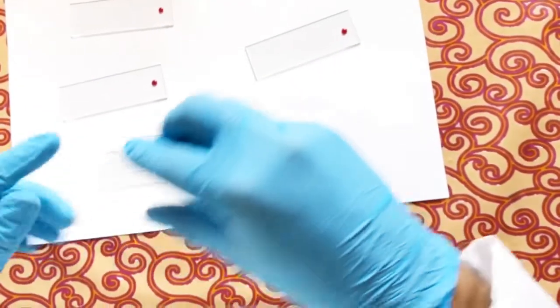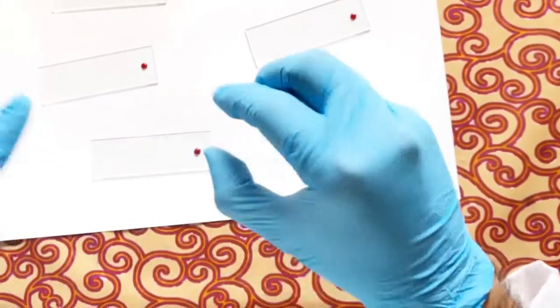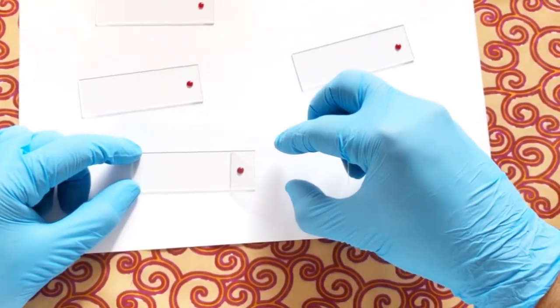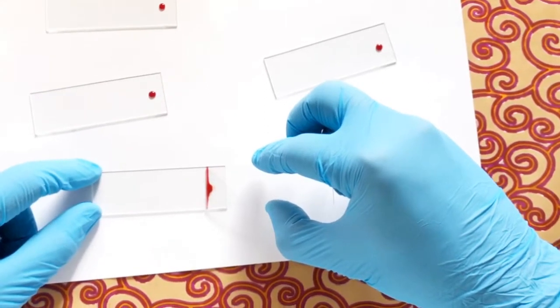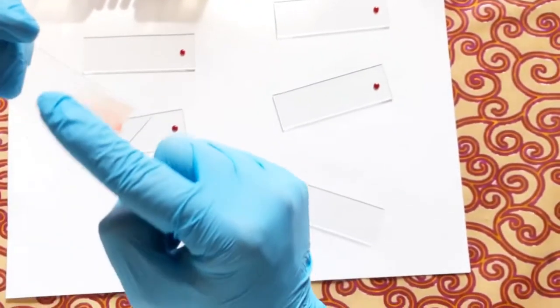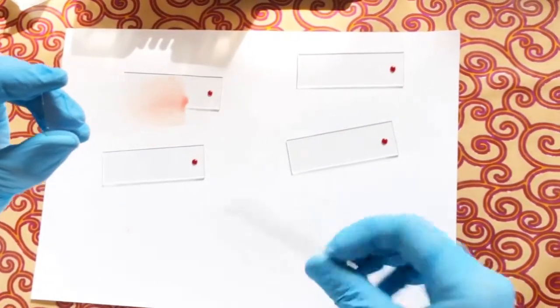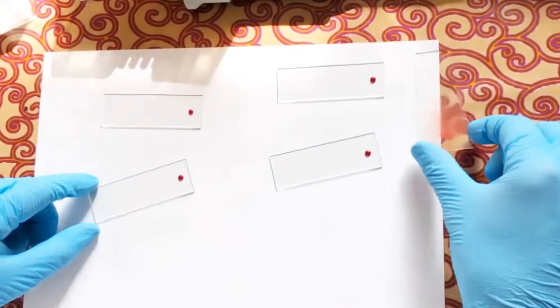Once the blood has spread along the spreader, move quickly and push the spreader forward in one smooth motion. Make sure all slide edges are clean and the slide surface is free of dust, as particles will cause air bubbles in the smear. Here is the first attempt — at 30 degrees, I move back, let the blood spread, then push forward. This slide is not completely tongue-shaped but is good enough; some air bubbles appeared due to rough edges on the spreader.